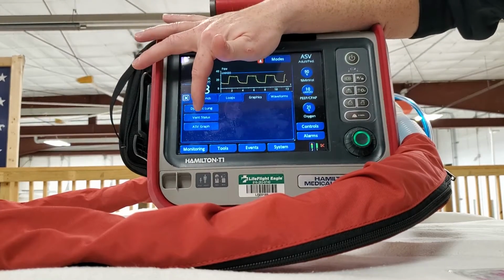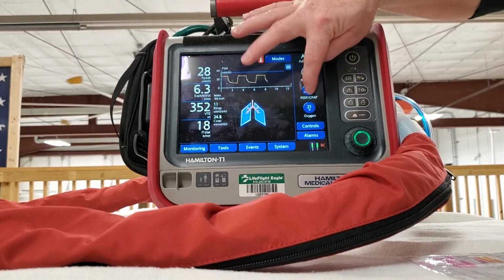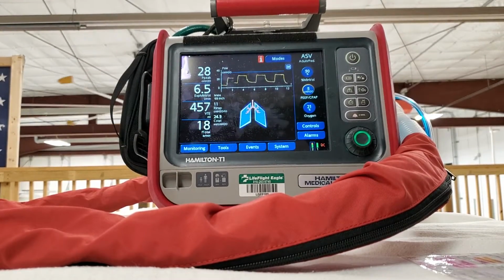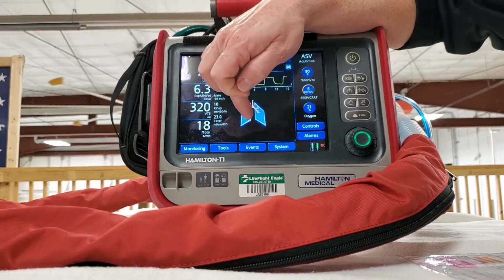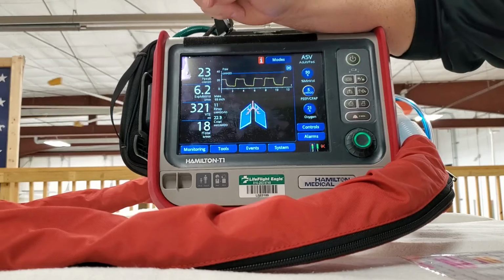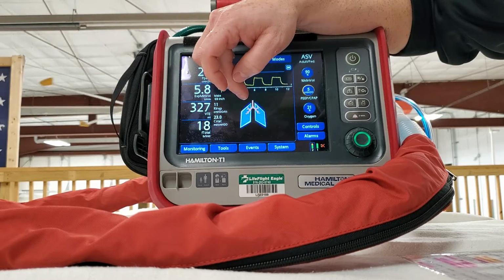So, the dynamic lung. This has got a lot of valuable information. Okay, so as you can see this lung right here, you'll have to see it when we do some training on it, but you can see two things. You can see colors of the airway, and you can see shape of the lung. If you have rounded lungs, now these are squared off, right? And they're smaller.